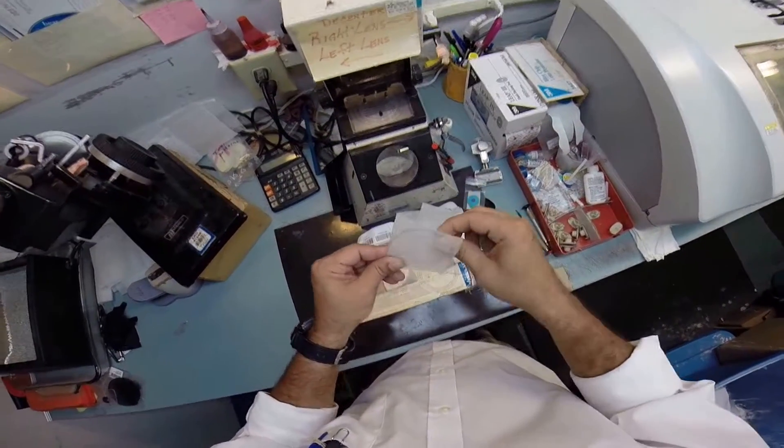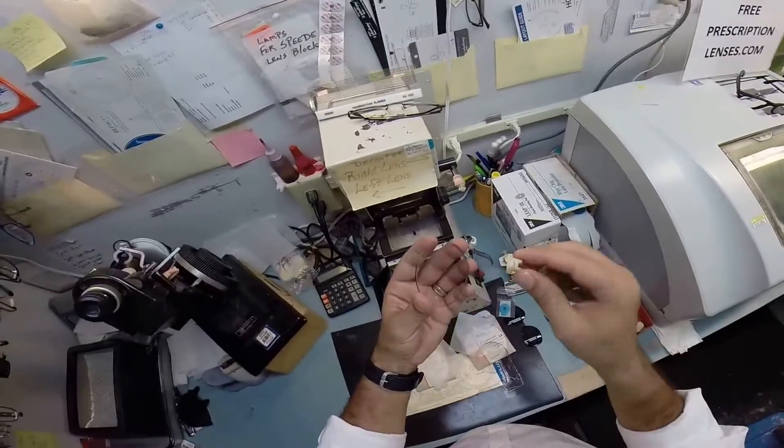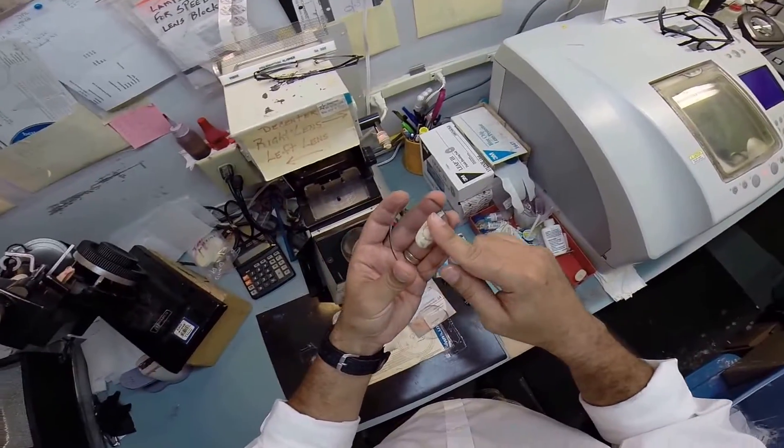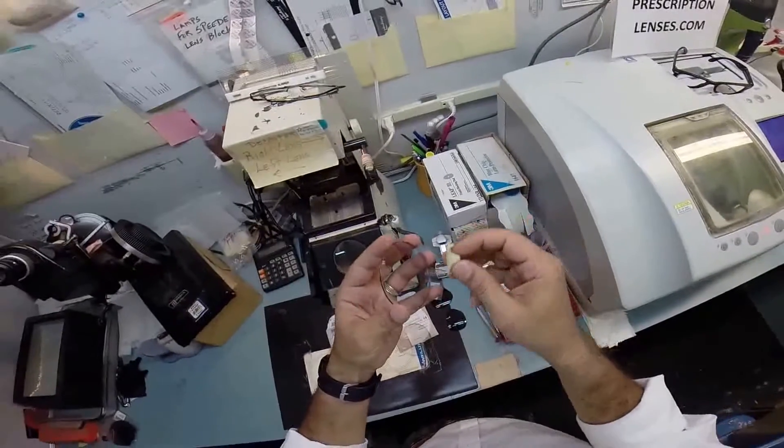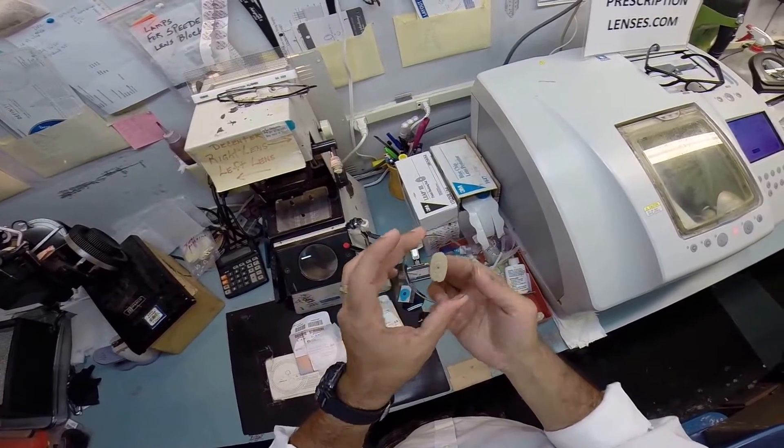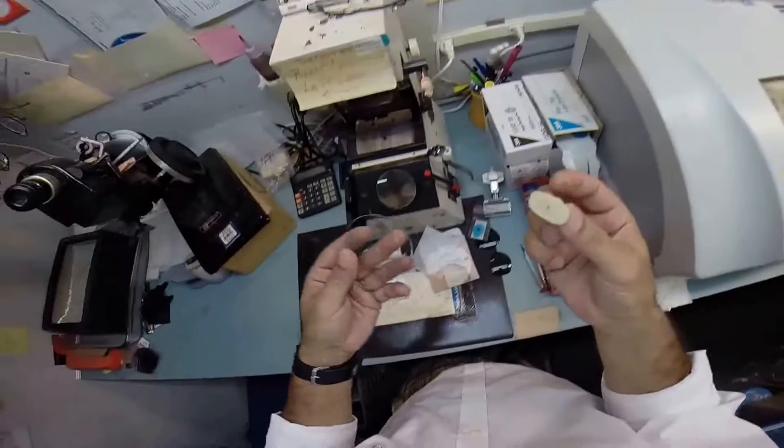I need to attach this block - this is what's gonna hold the lens in place while it's cutting. So I need to stick this on to the lens.